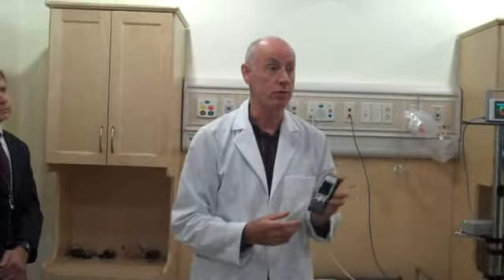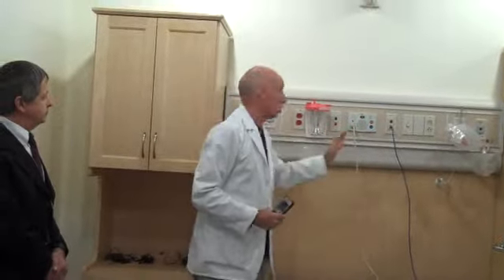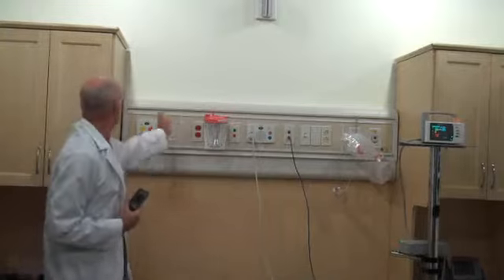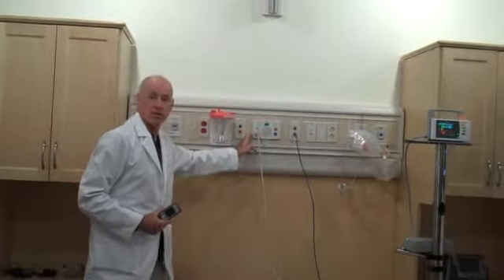nurse. It's much more suited to our hospital environment than our other phones were. So now, on with the demo. This is a typical hospital head wall. There's a whole lot of hospital-related modules that can plug into a head wall. For this demo, the two that are important are the advanced bed management station and the patient station.